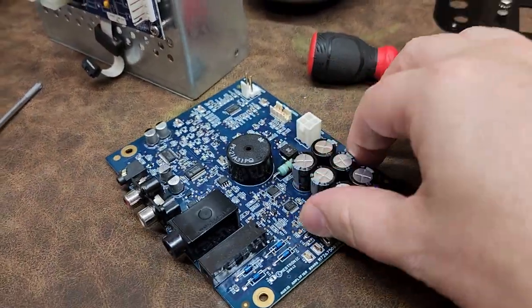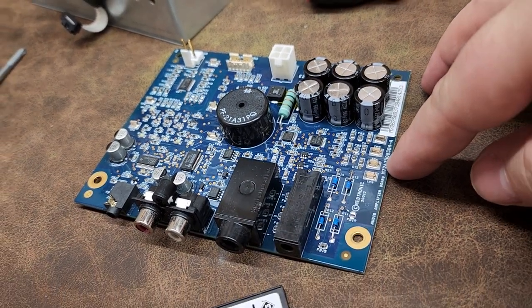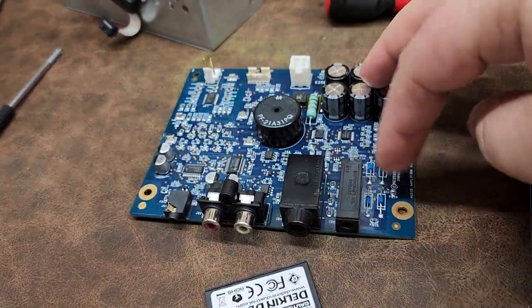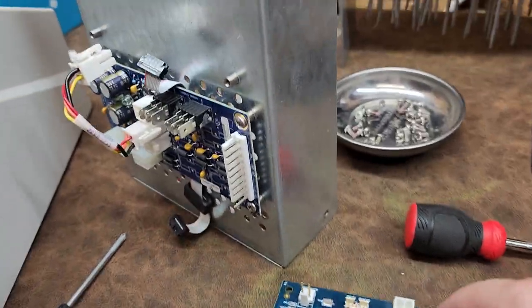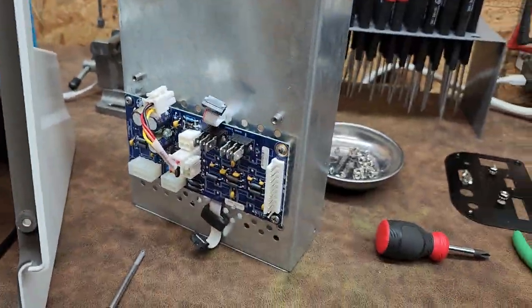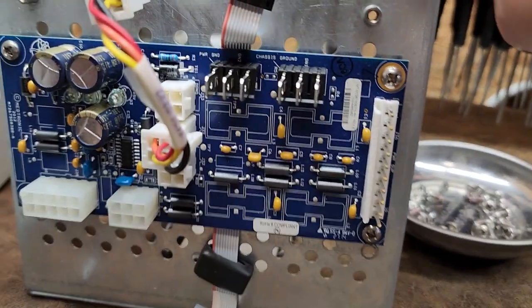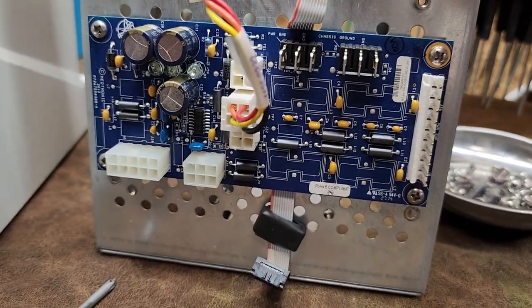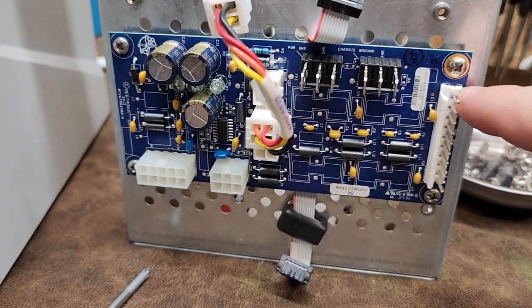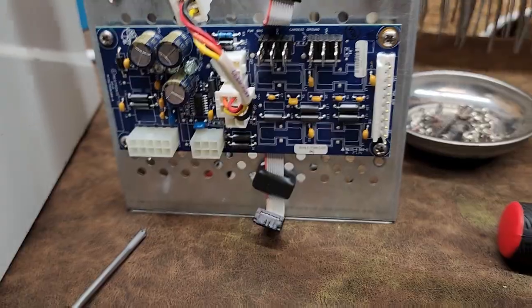We also have a Medtronic-designed sound card — how cool is that? Power comes in and you've got all your different ports right here. This sound card mounts on the top of the hood for your PC. And also on top of the hood is this power breakout board — you can see we've got power inputs and then all the various power outputs. Pretty neat stuff.